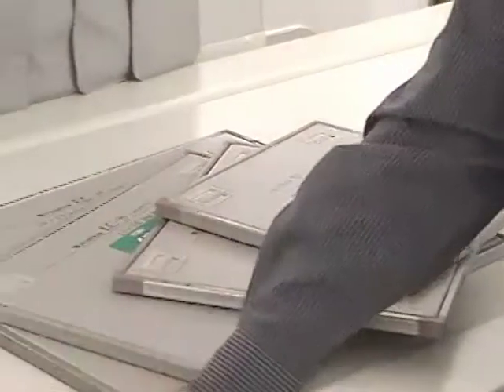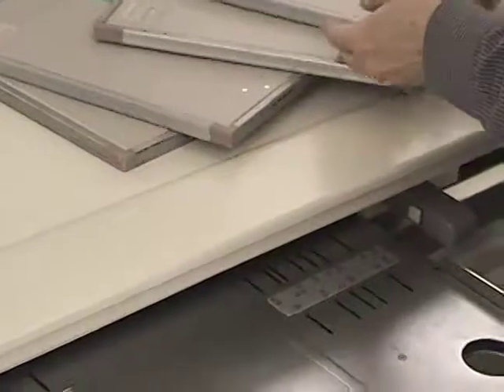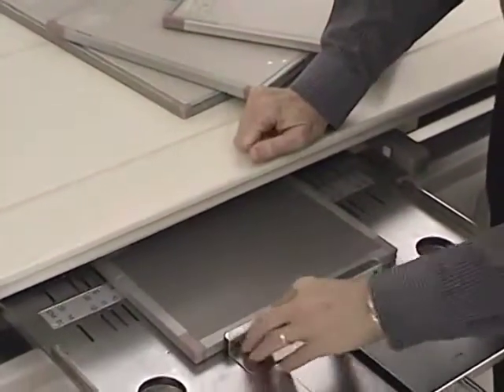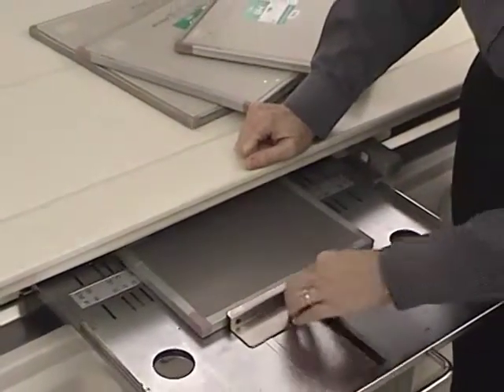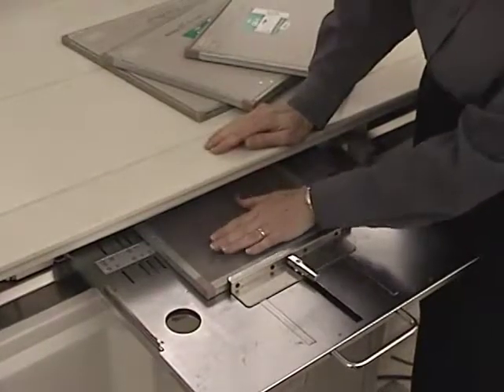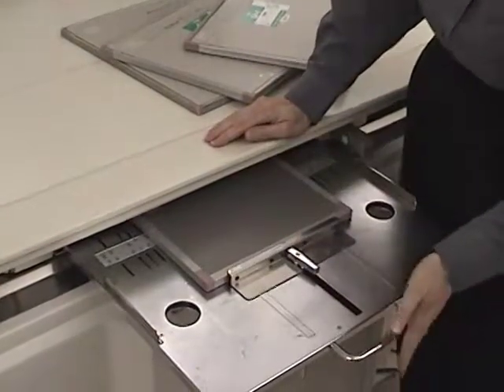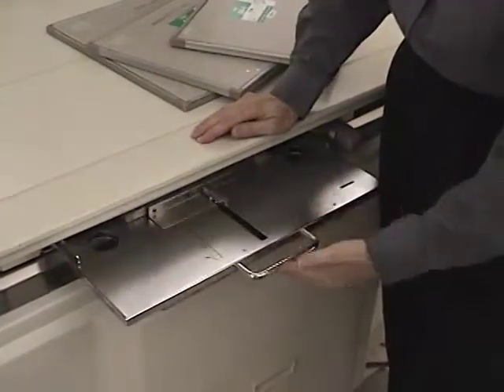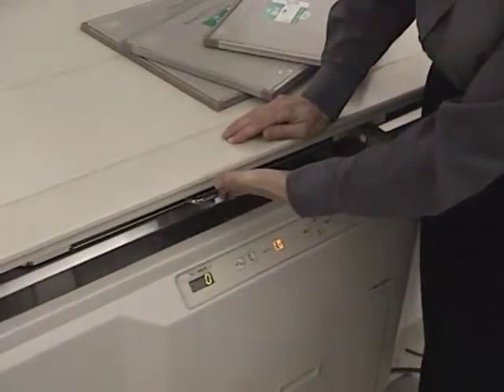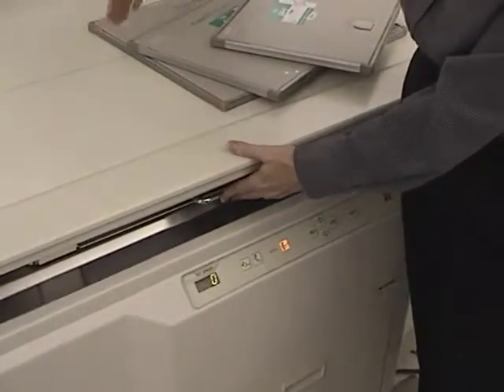Here's our table. This is our tray that holds the cassette. We put it in like this, and you remember from the other, or will learn if you haven't already gone through those other materials, that the grid is right underneath the table just above the cassette. So sometimes we use words like bucky and grid interchangeably, but this is the tray that holds the cassette. The whole device is usually referred to as the bucky. When you place the tray all the way in with the film on it and then make your exposure, the grid that's underneath the table will oscillate.